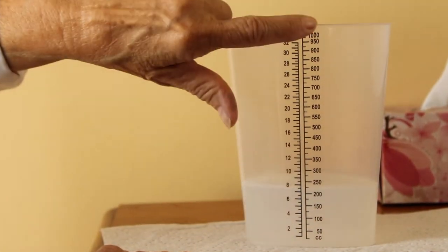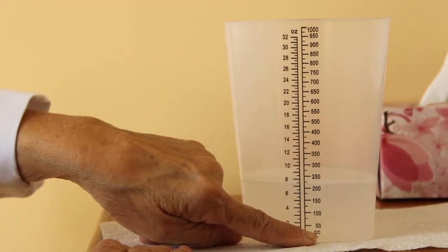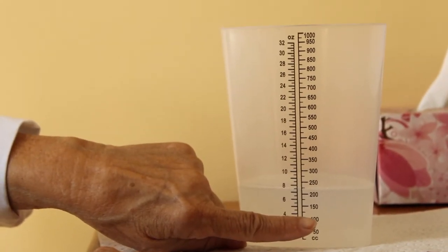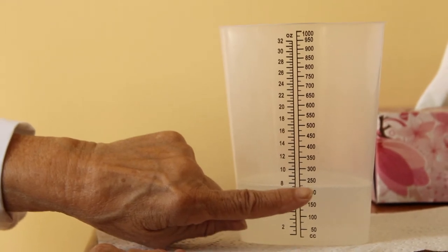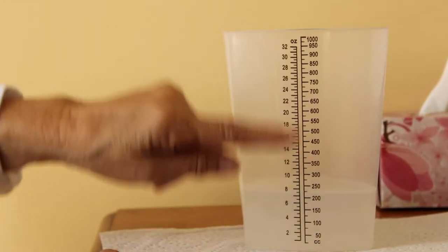Right side, cc's or milliliters. You have 50, 100, 150, 200, 250, 300, and further.